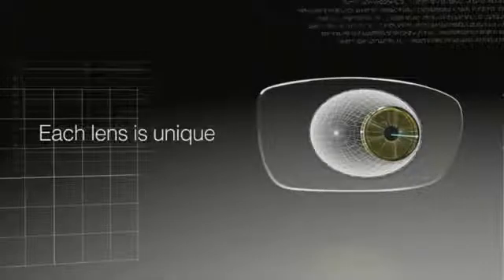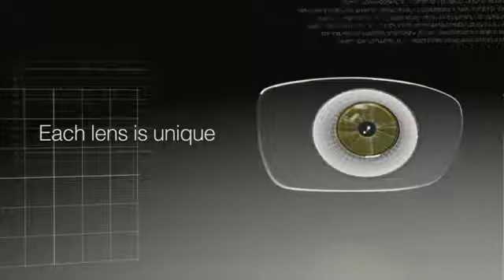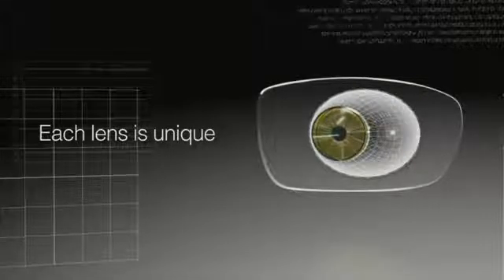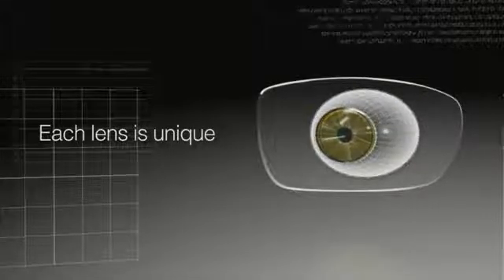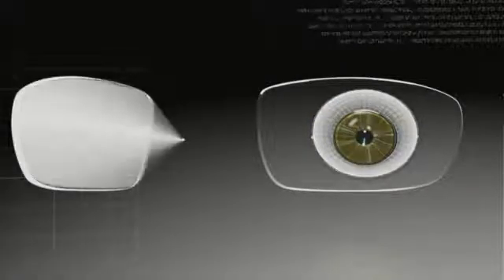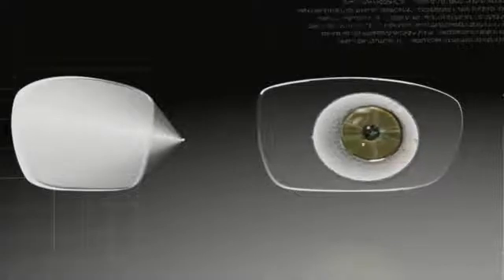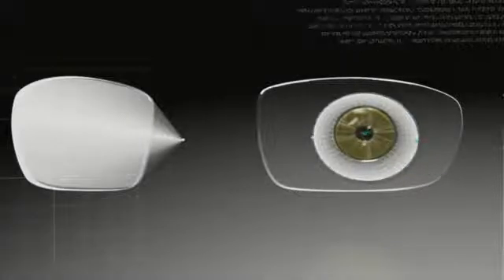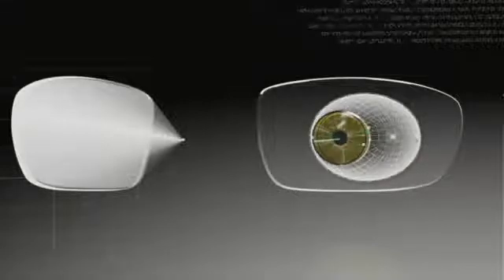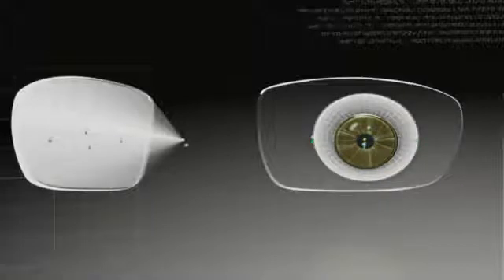Because each eye is unique, each lens must be, too. When directing the eye to view any given object, all fixation axes will pass through the eye rotation center and intersect the lens in precise areas. Knowing the position of the eye rotation center is the only way to calculate the unique optical function for each gaze direction and achieve a perfect lens-to-eye alignment.